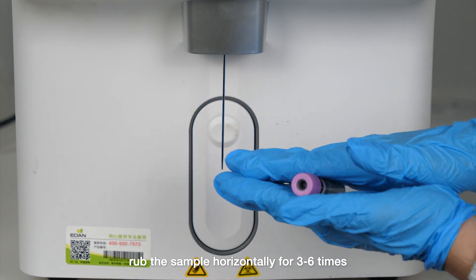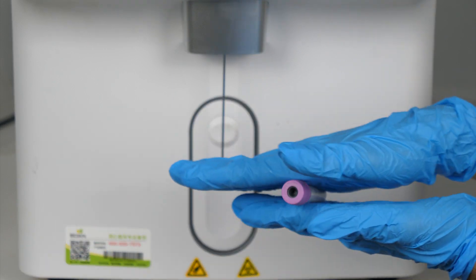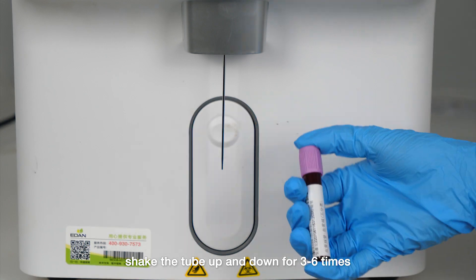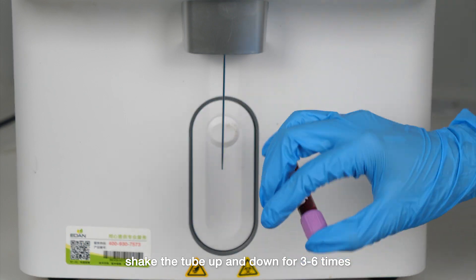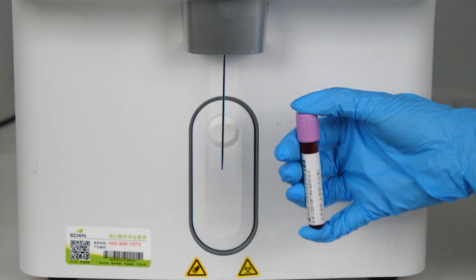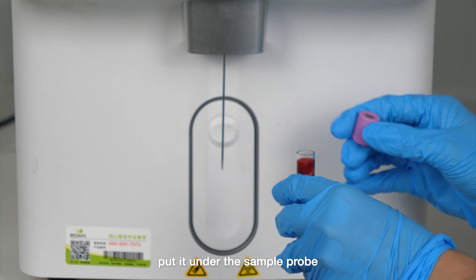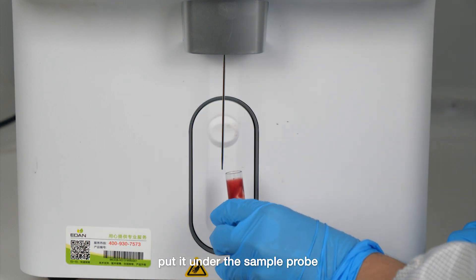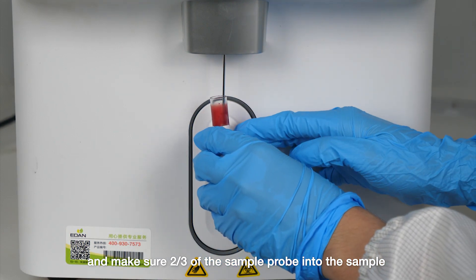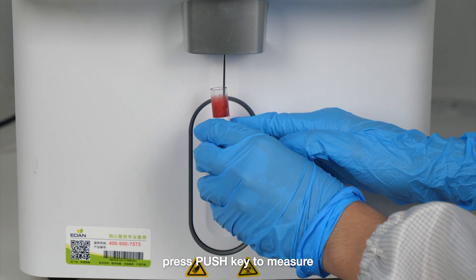Rub the sample horizontally for three to six times. Shake the tube up and down for three to six times. Open the cap of the tube, put it under the sample probe, and make two-thirds of the sample probe into the sample. Press the push key to measure.